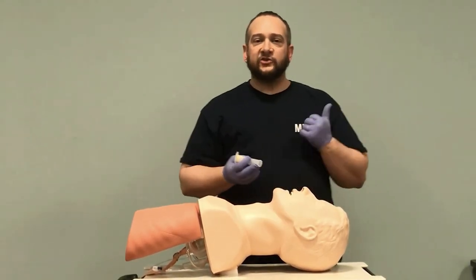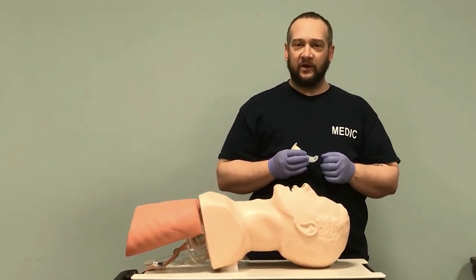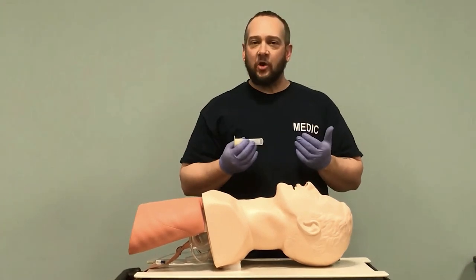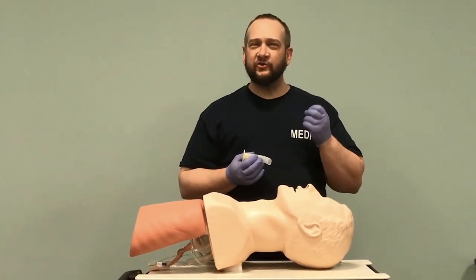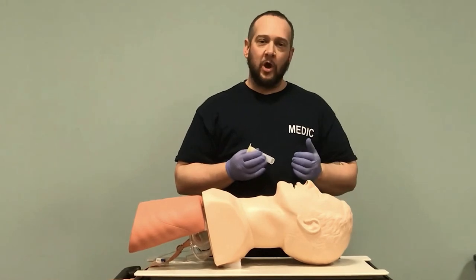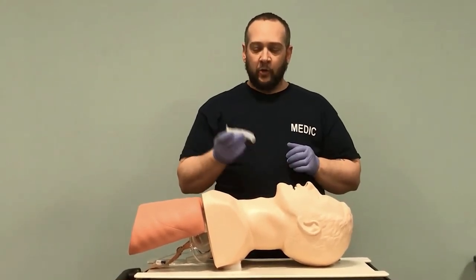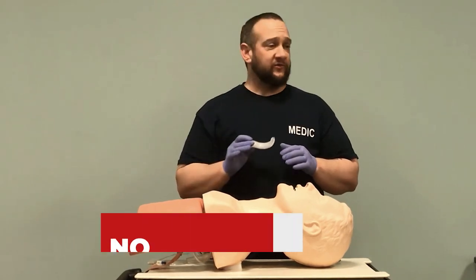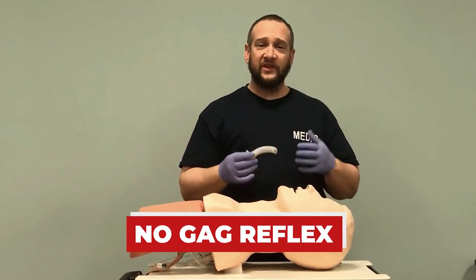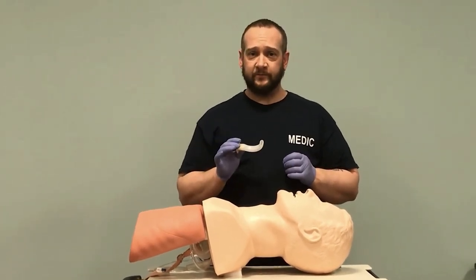Indications require the patient to be unresponsive with no intact gag reflex. If the patient is semi-conscious and still has a gag reflex, they can somewhat protect their airway — that's a contraindication, and we'd move on to the NPA. If you start to insert the OPA and the patient gags or dry heaves, remove it; this would not be an appropriate device.